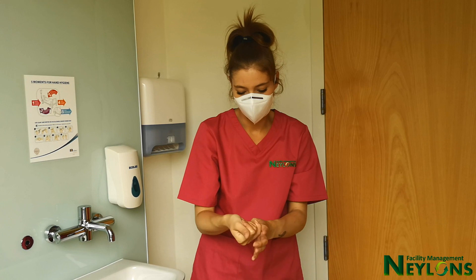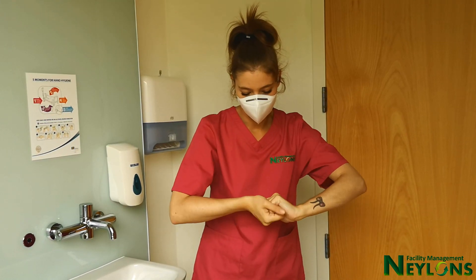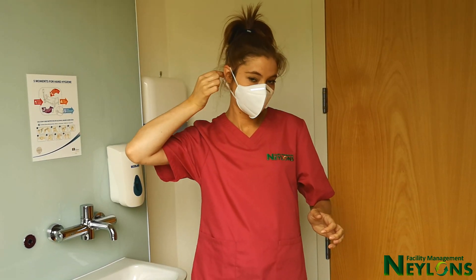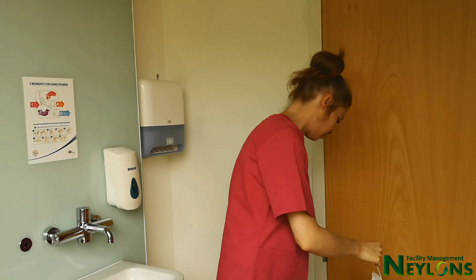The front of the mask is contaminated and you should only touch from the back. For surgical masks with strings, lift from the crown of your head and remove. This is the reason for masks being tied over the ears for easy removal.